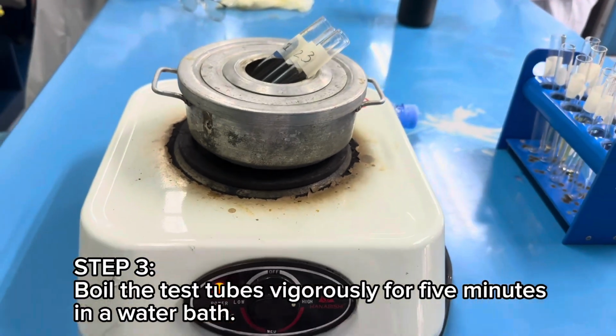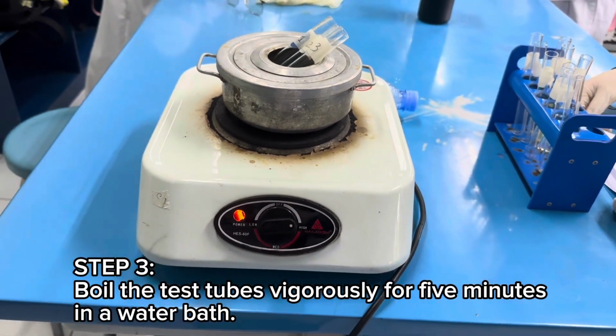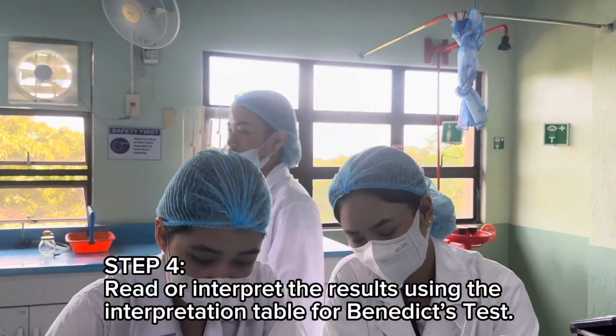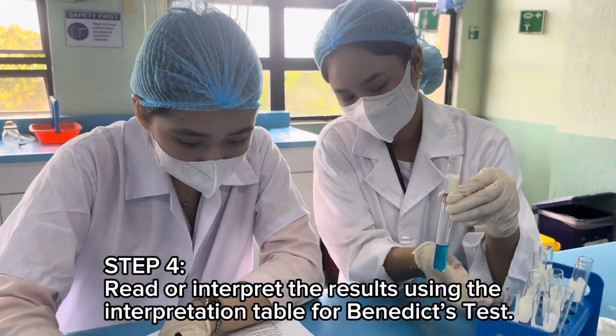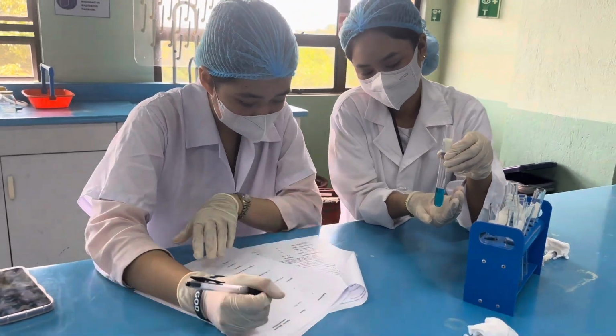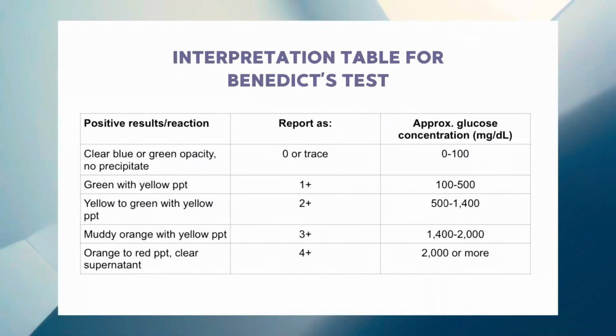Step 3. Boil the test tubes vigorously for 5 minutes in a water bath. Step 4. Read or interpret the results using the interpretation table for Benedict's test. Interpretation table for Benedict's test.